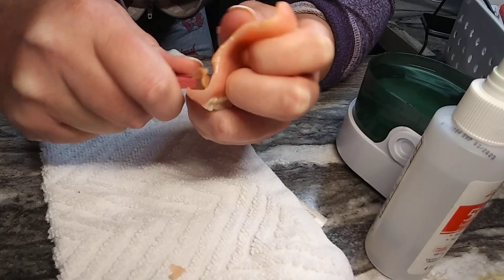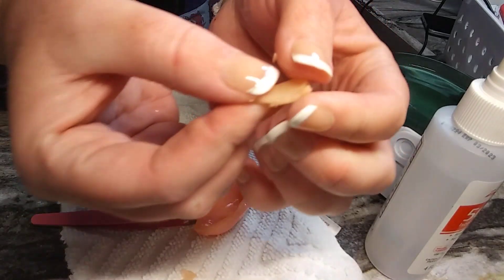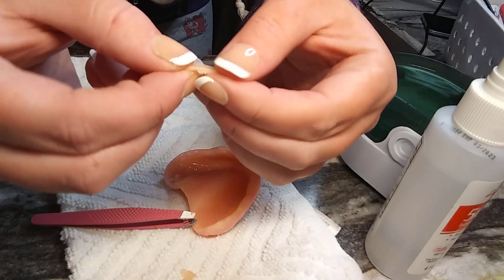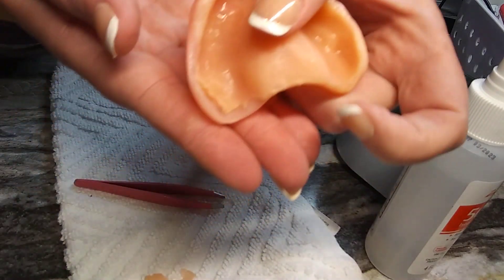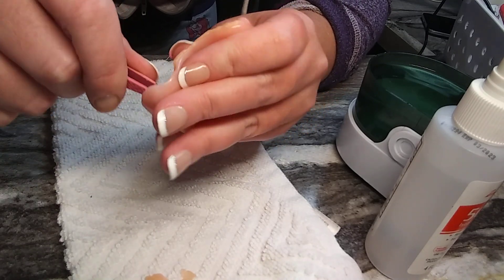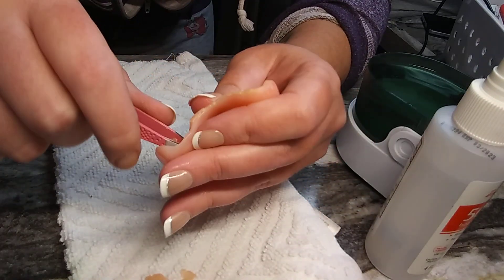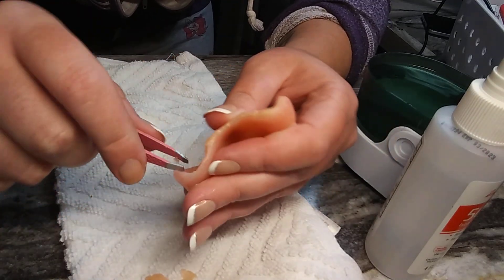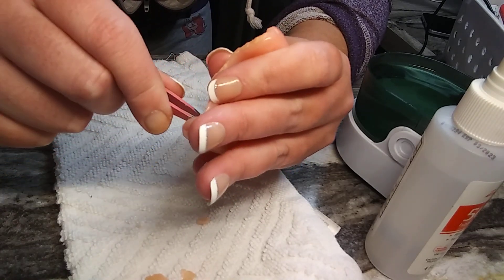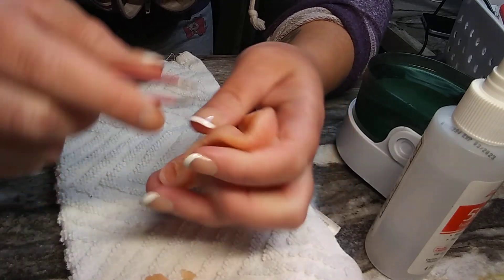When you see your reline starting to discolor — see the discoloring on the outside edges? That's your food staining it and it's drying out. It'll be hard in some spots and soft in others. Tweezers are the best way to do it. So many people say it's hard to get out — it is going to be hard — but if it's easy for anyone, they never did it right, because if it was easy to come out, it was easy for water and food to get in there.